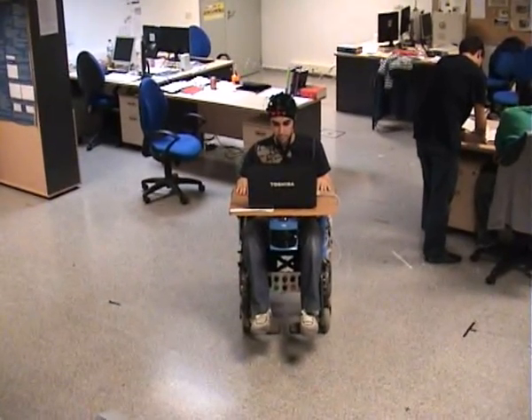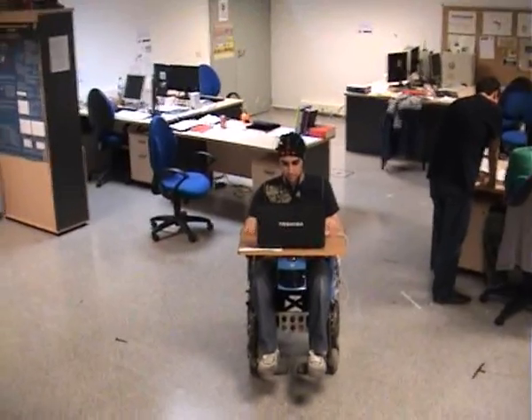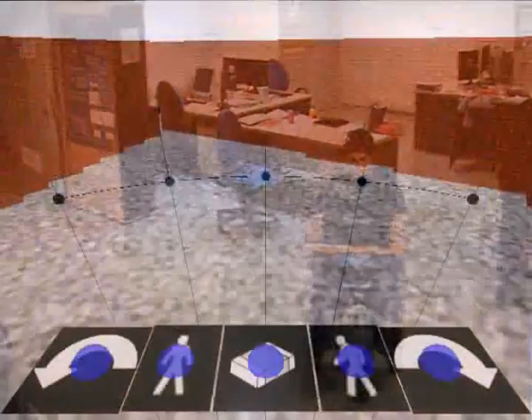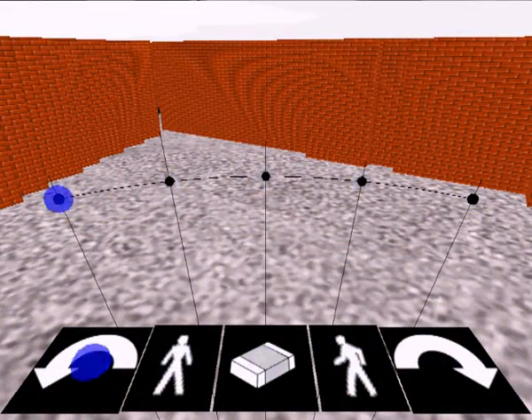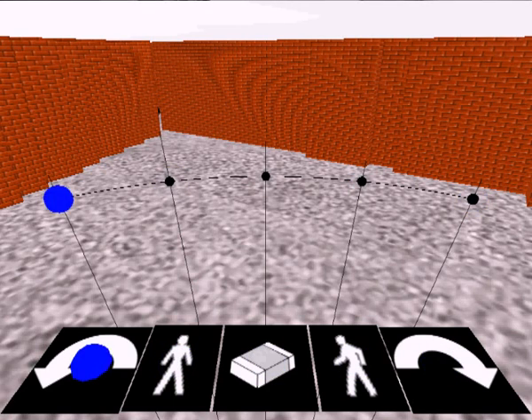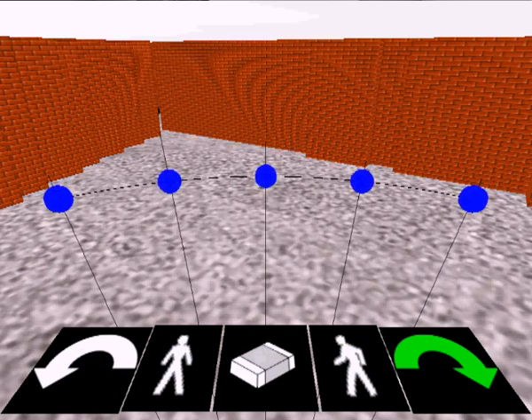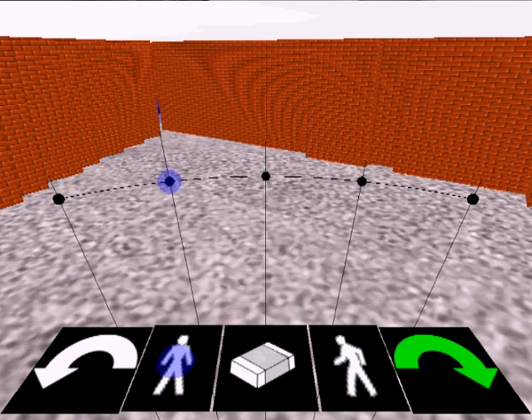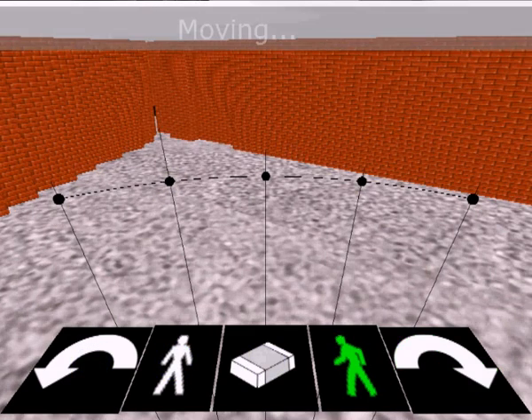To elicit this potential, an option is stimulated by displaying a circle on the selection. One stimulation process consists of stimulating all options in random order. The EEG is recorded during this process and transferred to a supervised learning module that is trained to recognize the P300 evoked potential and thus to infer the option that the user is attending to.